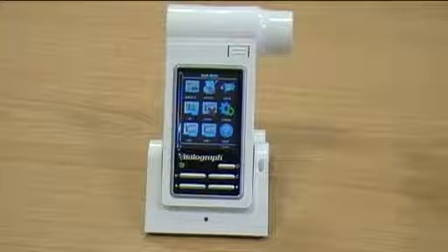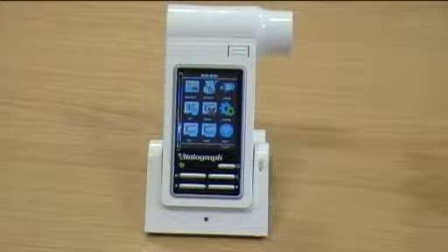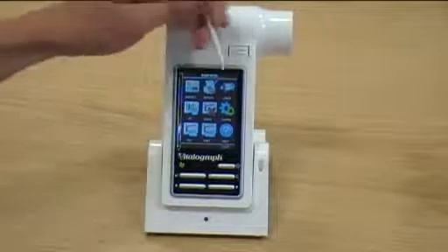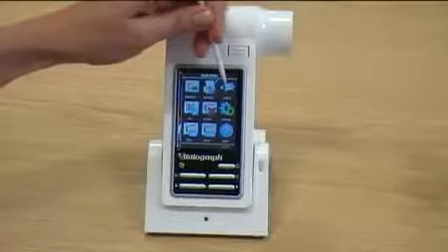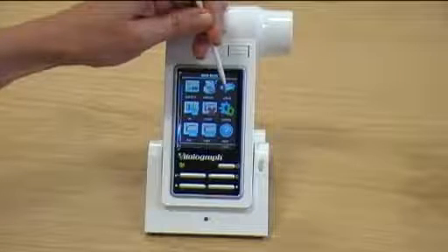To perform an accuracy check on the Intuitive, one needs to press the check button or icon and follow the instructions.